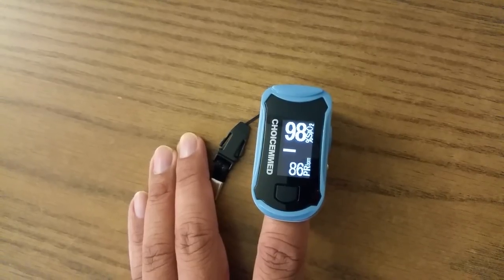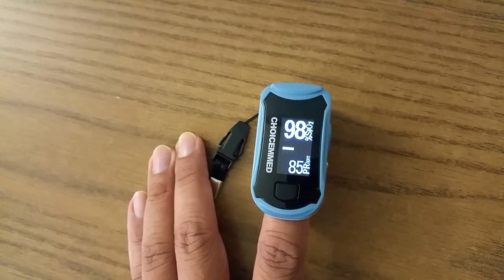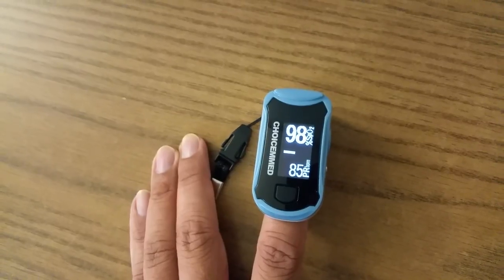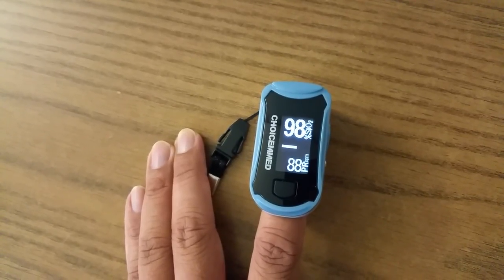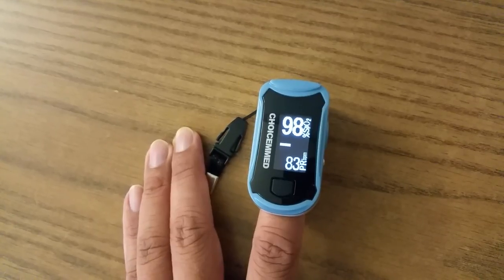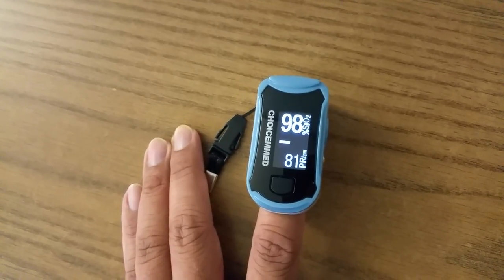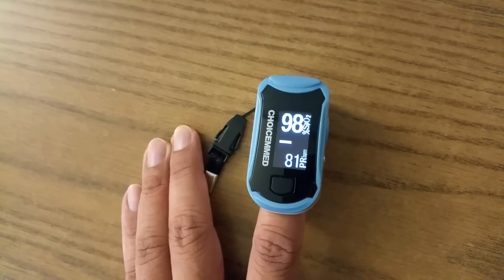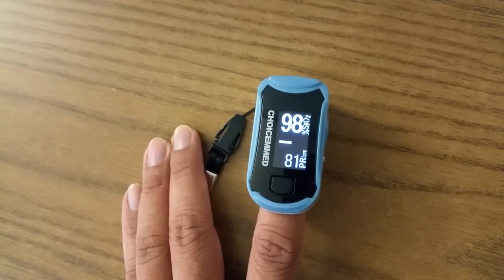For many people, if it's lower than 88 for a long time, you can get shortness of breath easily. You want to take deep breaths to bring it up, or discuss with your doctor if it keeps going lower than 88.